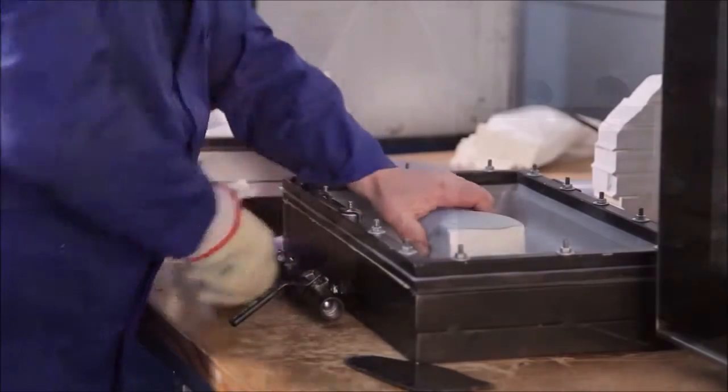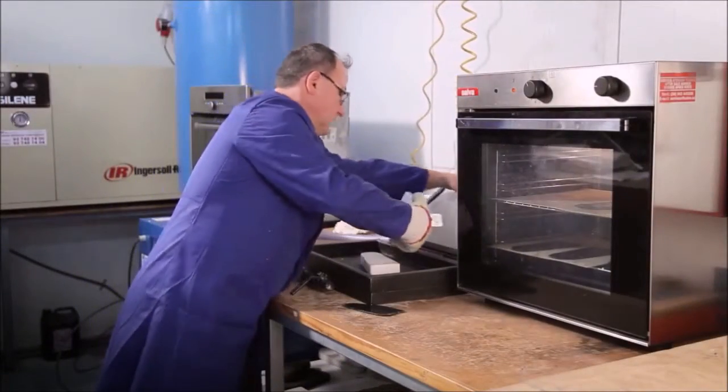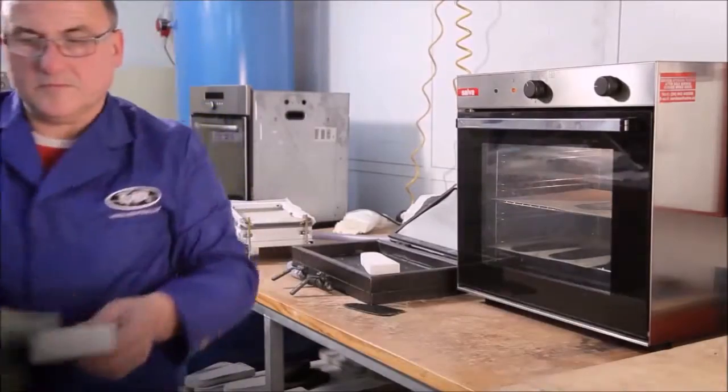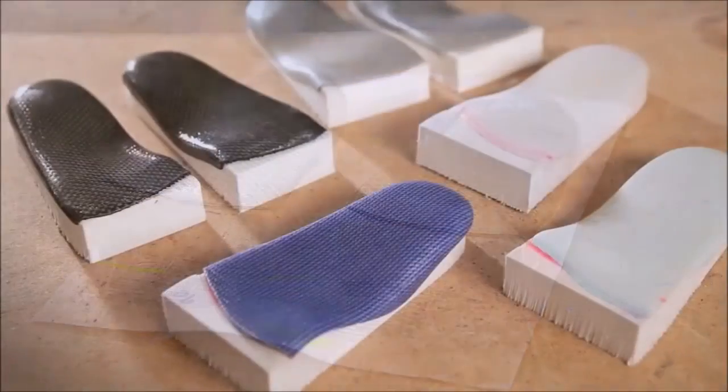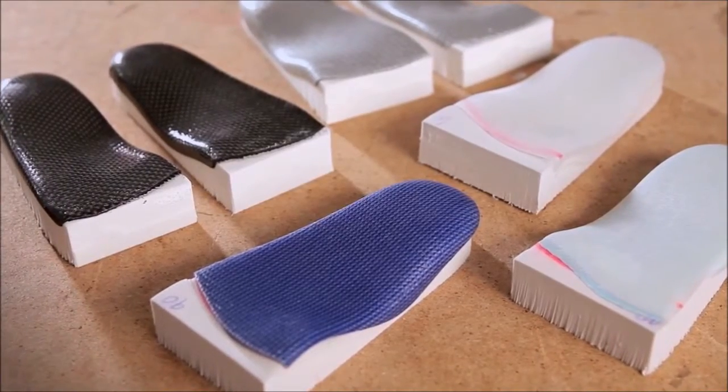Our solid and effective computerized process allows exact duplicates to be ordered any time. With a wide range of materials available, such as polypropylene, matrix, silver, or graphite blue carbon.